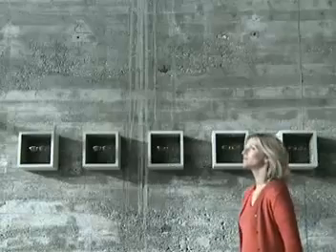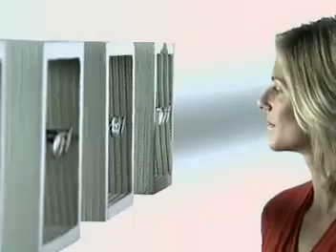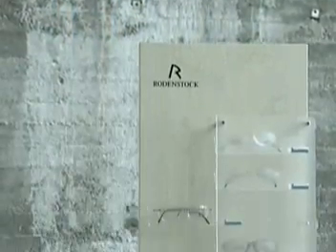And all features which have to be taken into account in the surfacing of progressive lenses and the fitting of the spectacles to guarantee optimum vision. Rodenstock has made this vision reality. ILT individual lens technology makes individually optimized progressives possible, which make vision a unique experience.